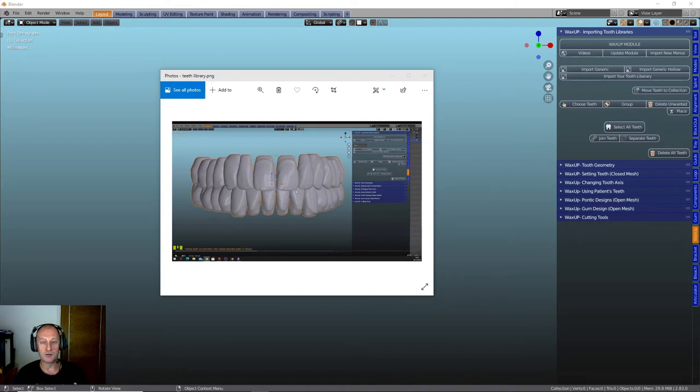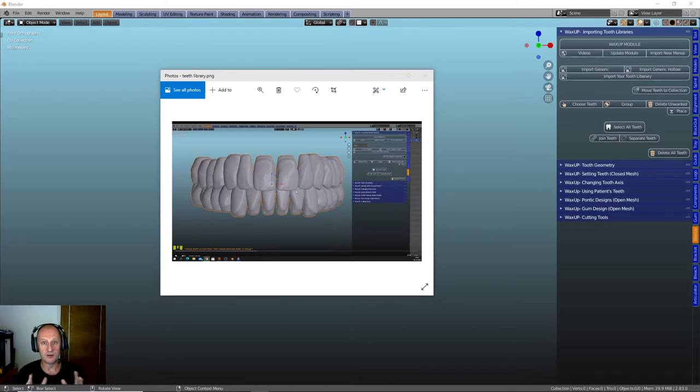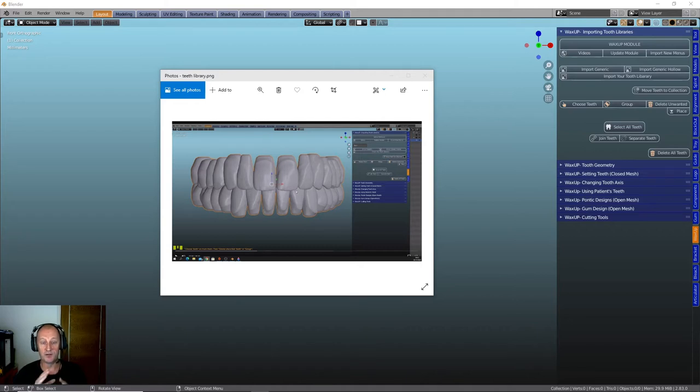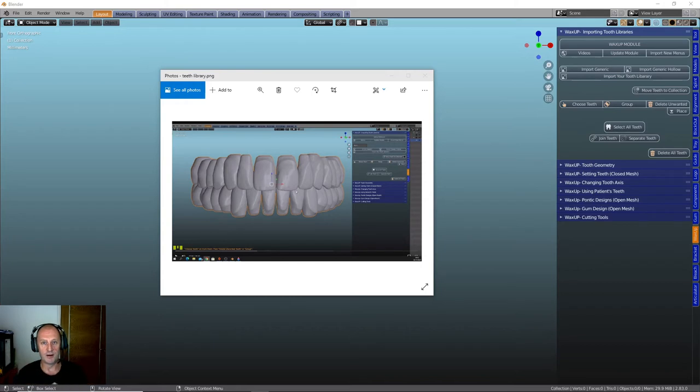And that's the sort of key thing with Blender for Dental is that it allows the user to really sort of stretch themselves and play around with what they've got. So, that's one of the key things about this module. You do have to have a working knowledge of the model and articulator modules before you even start on this, otherwise you'll be pulling your hair out.